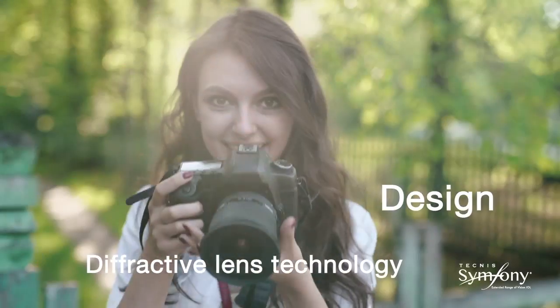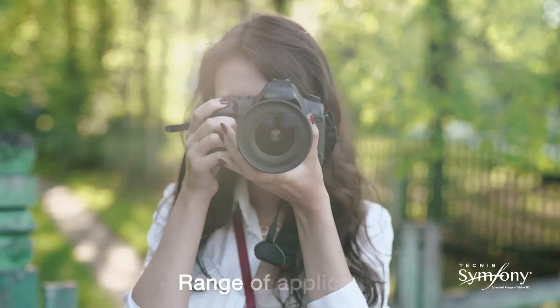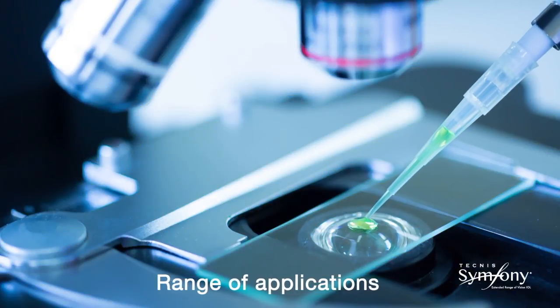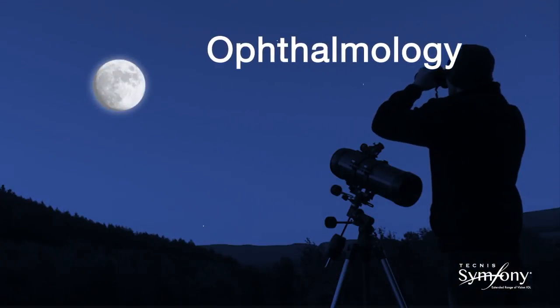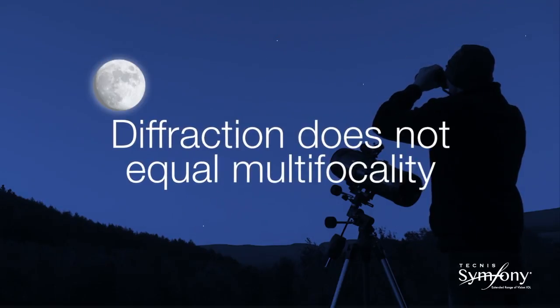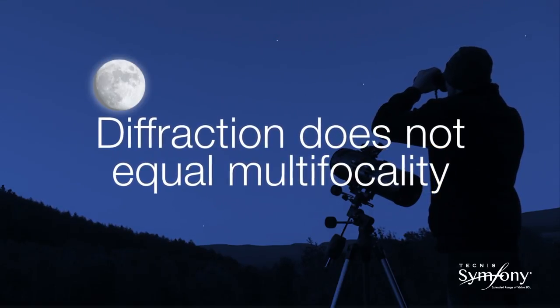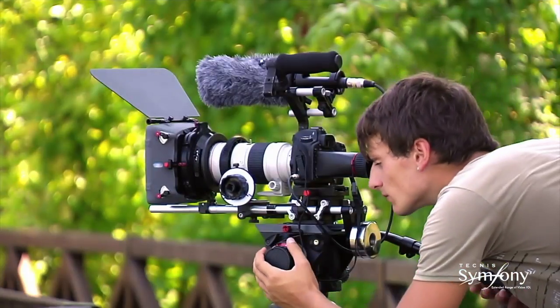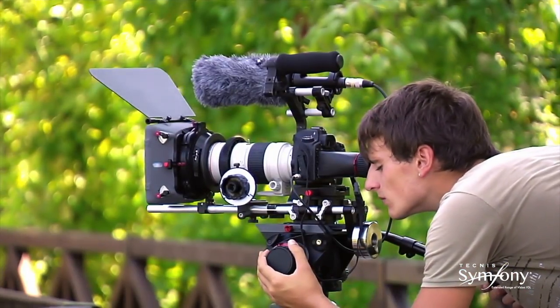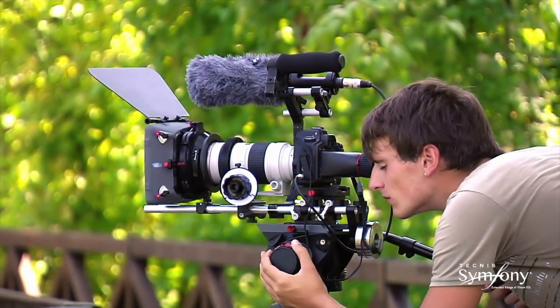Diffractive optics are used extensively in photography to create high-quality lenses to produce very sharp images. Up until this Symphony lens, ophthalmology has used diffraction to create multifocality, which does suffer from some halo and glare at night.